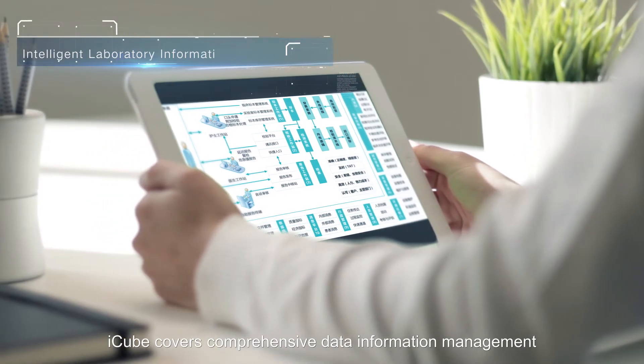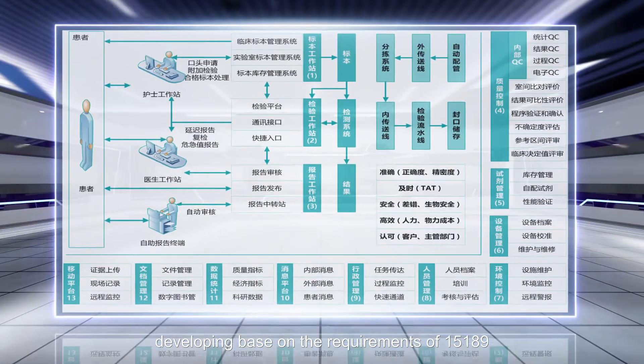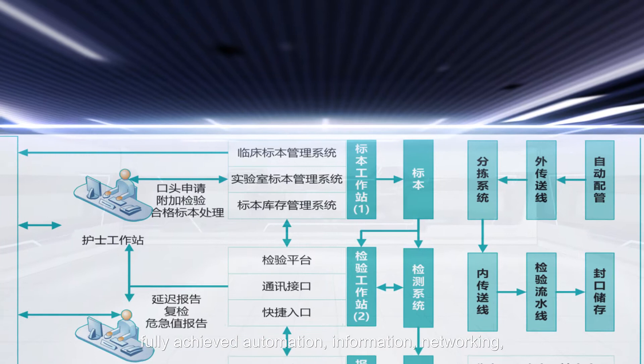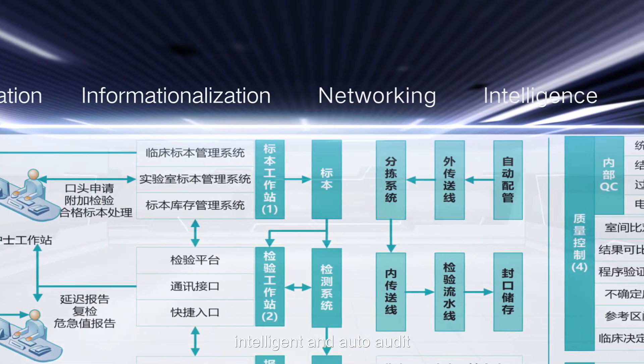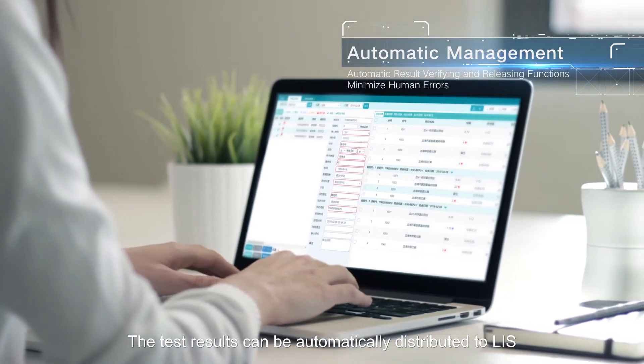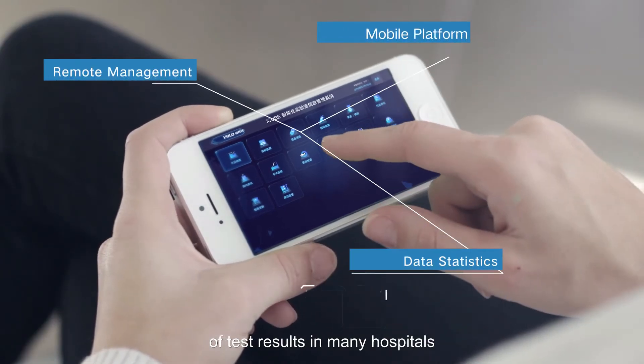iCube covers comprehensive data information management developed based on the requirements of ISO 15189, fully achieving automation, information networking, intelligence and auto audit. The test results can be automatically distributed to LIS system and enable mutual recognition of test results in many hospitals.